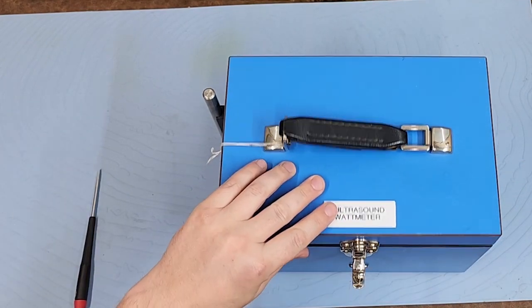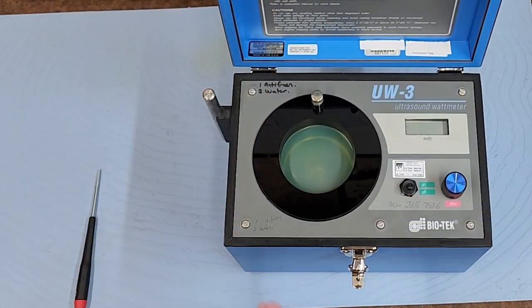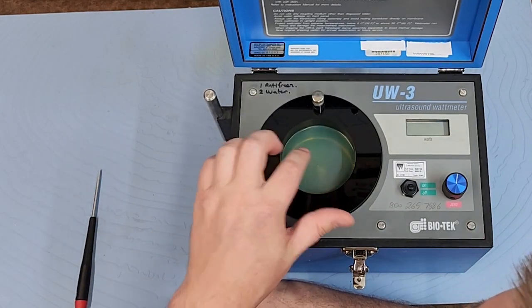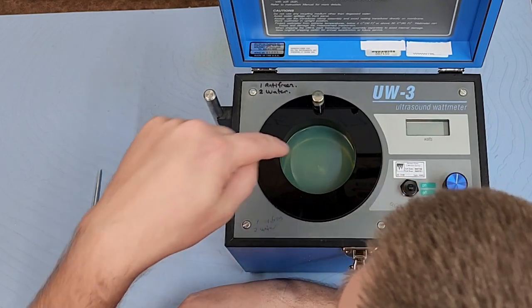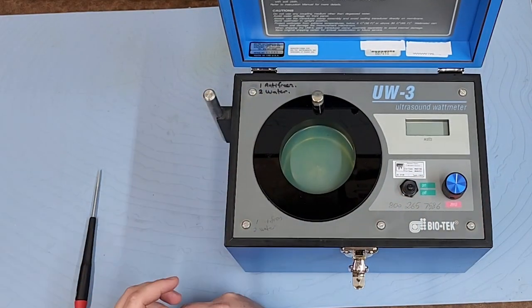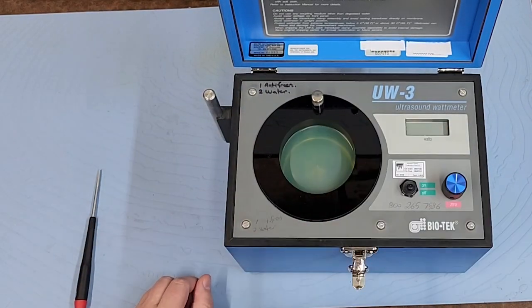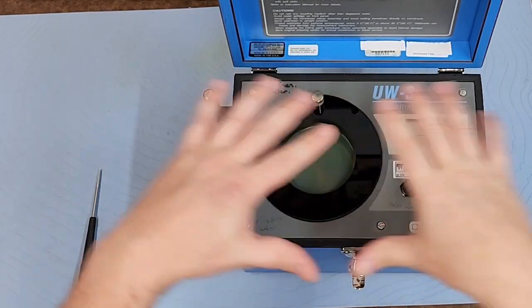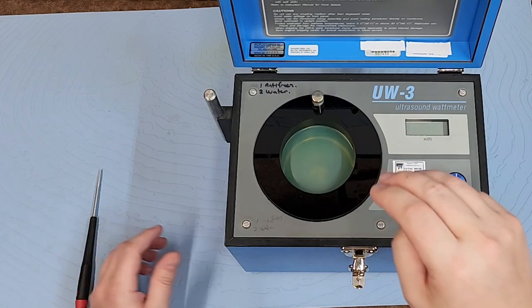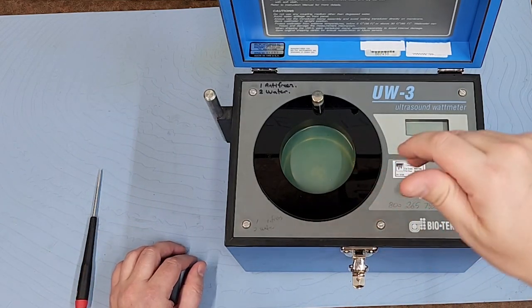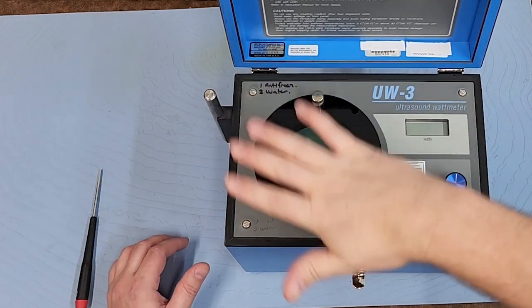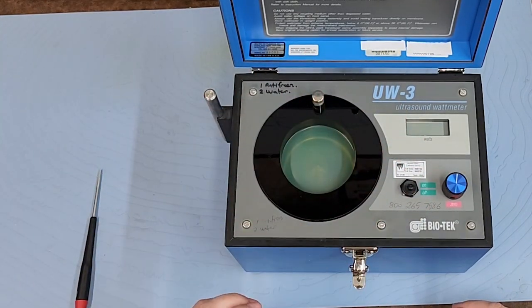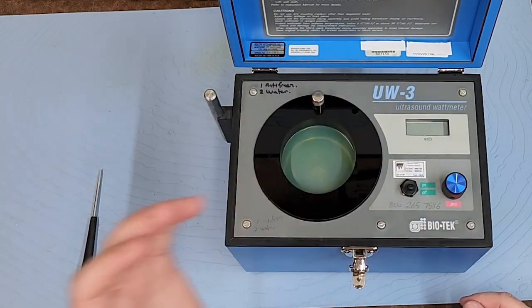So I can show you here, I have a reservoir and the reservoir is filled with liquid. In the bottom of the reservoir is a cone, and that cone transfers out the ultrasound energy and actually measures kind of like on a scale the amount of force pushing down on it. The more watts, the more force pushing down on the cone, and that's how it gets its readout.